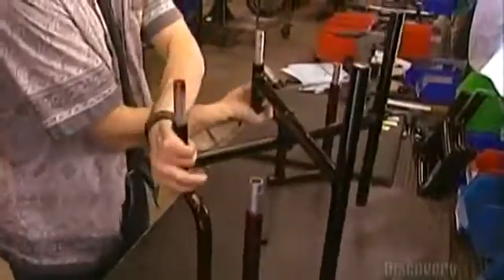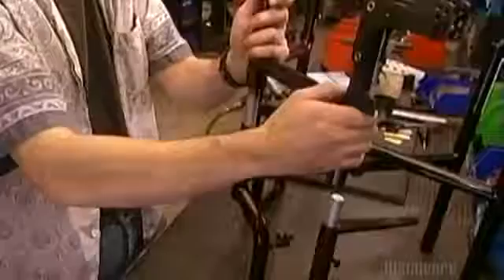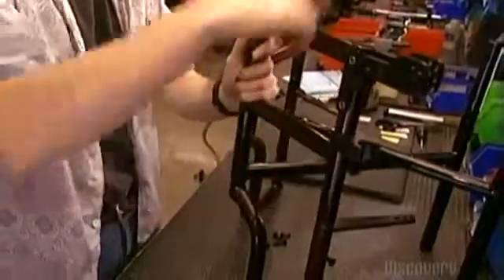The front part of the wheelchair is called the front frame. Workers lubricate the parts so they'll be easier to install, which also enables the wheelchair to fold with ease.